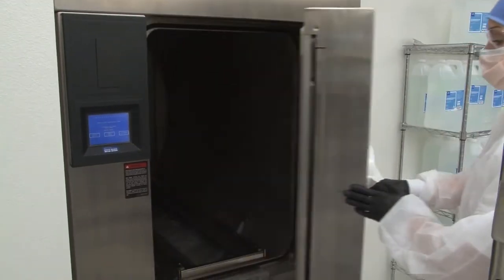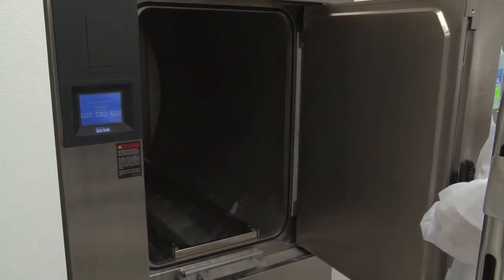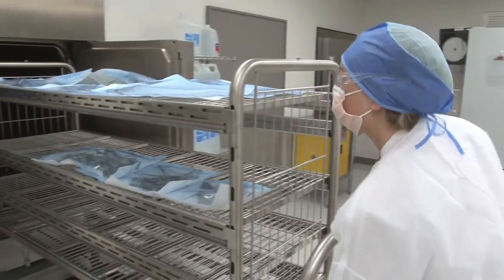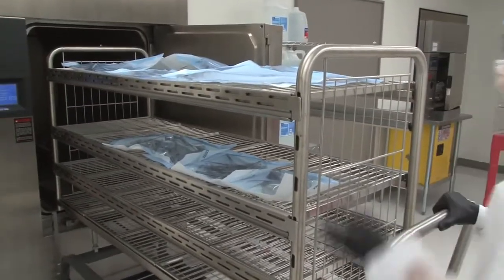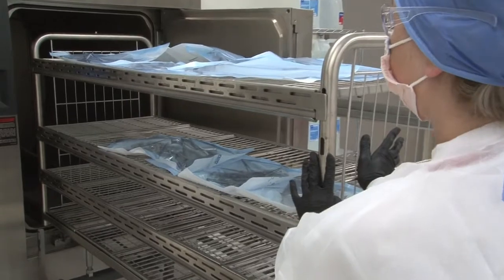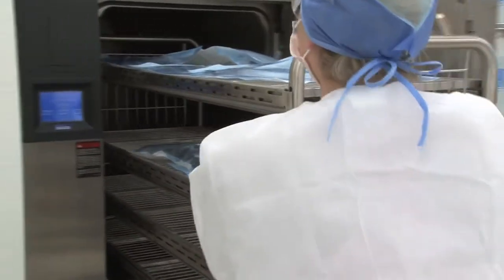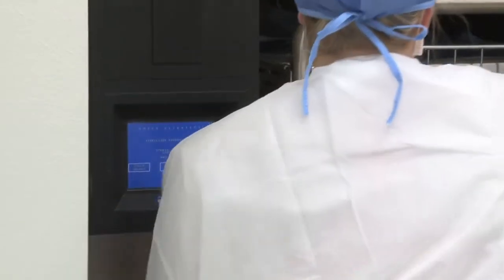The Steris Sentry MSS is designed for today's demanding sterile processing departments. This autoclave safely sterilizes up to 375 pounds per cycle, allowing for high-volume sterilization and heavier trays while meeting compliance guidelines.